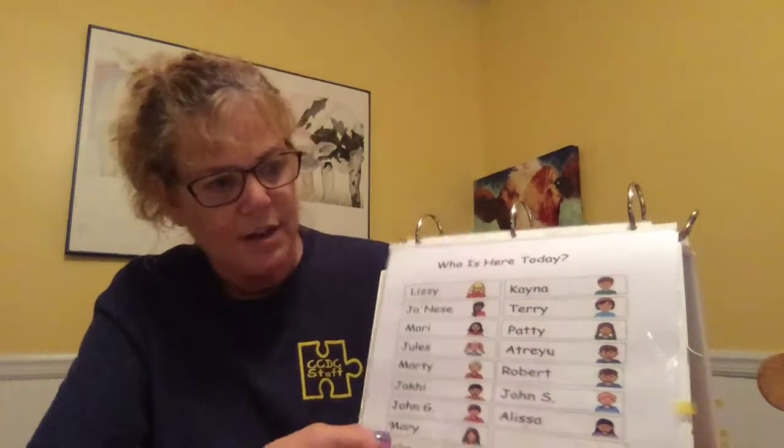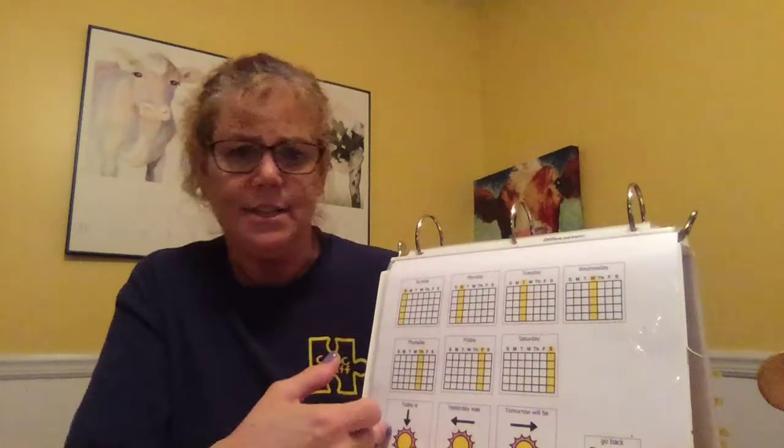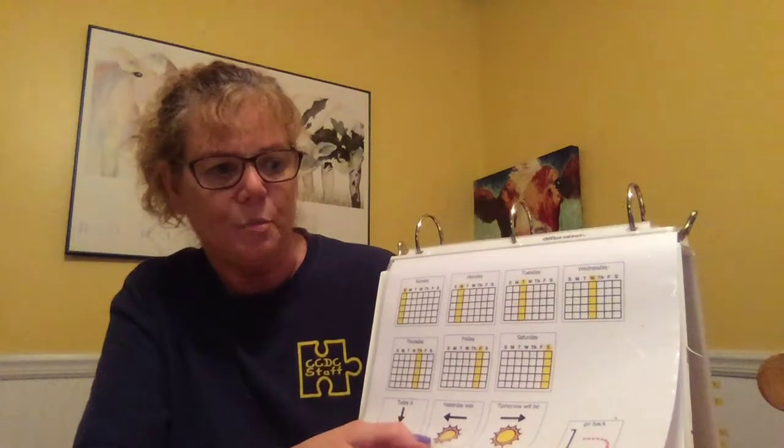the office. I also set up calendar pages for morning meetings, same kind of thing. Today is, and ask John a couple of days, narrow it down, find out, and then you can do yesterday and tomorrow. And then also weather symbols, so John can indicate the weather during morning meeting.